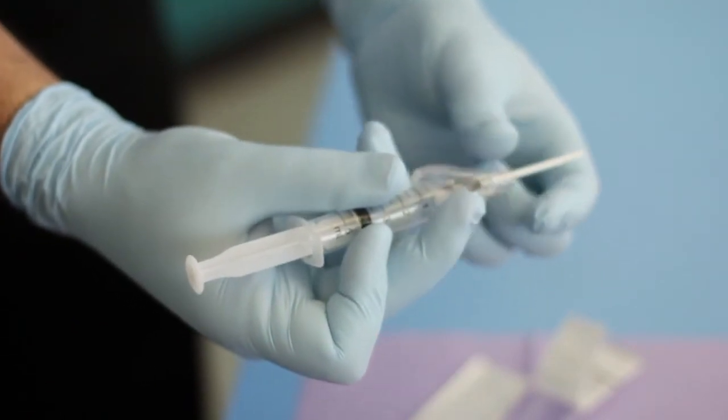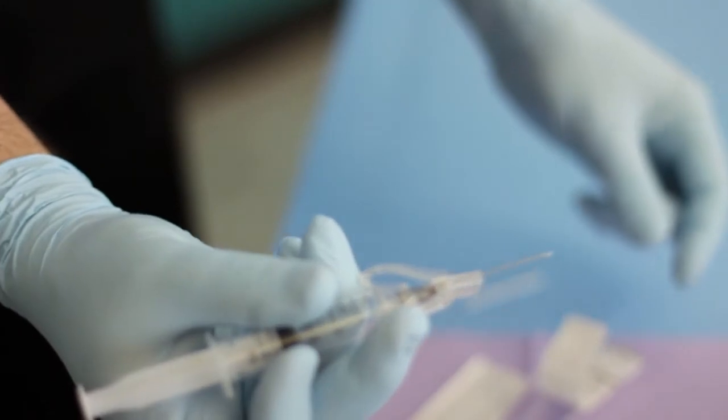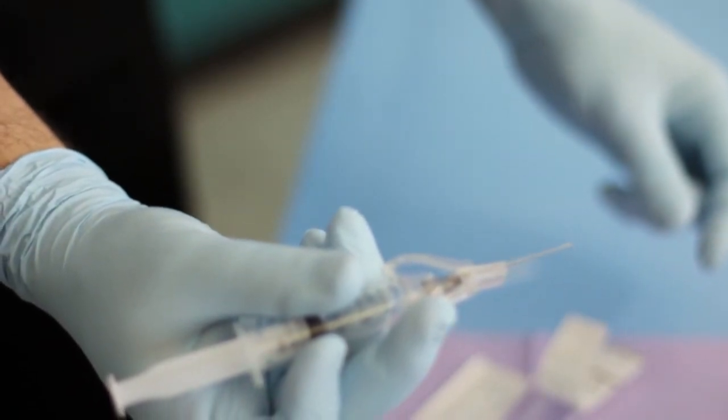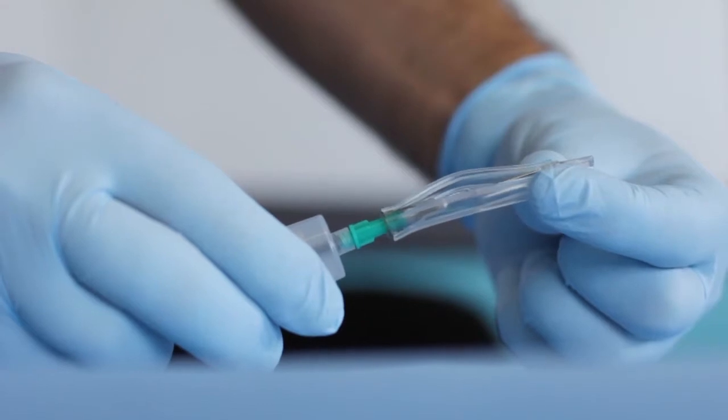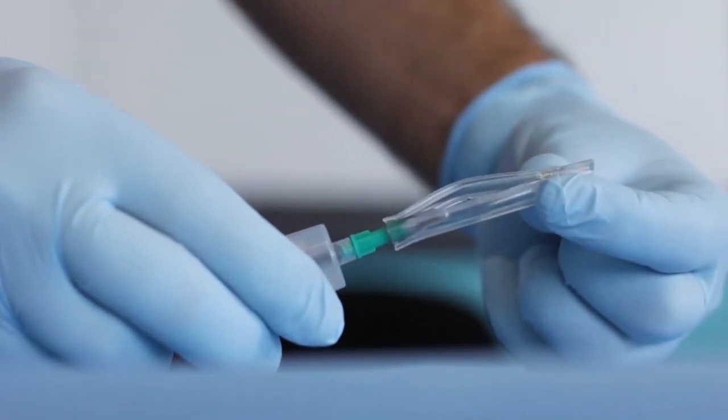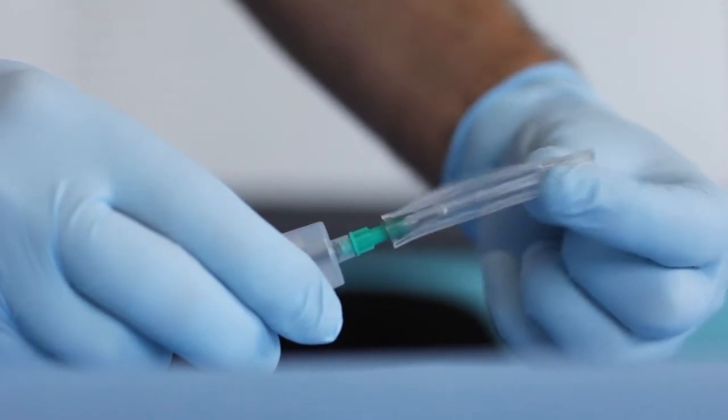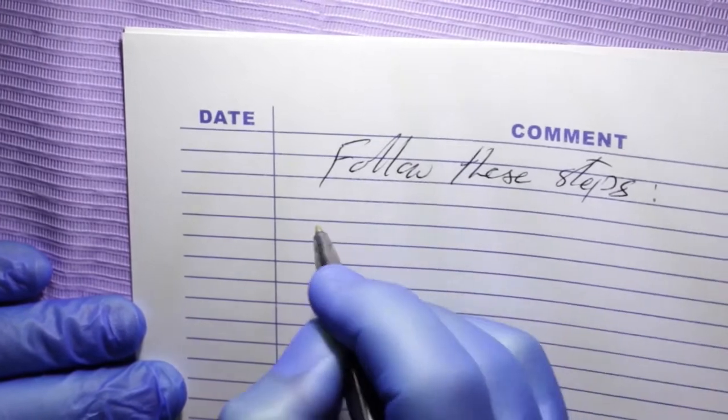The Apprentice-Doctor Venipuncture Kit contains AutoSafe Reflex safety needles, based on a comparative study of five types of safety needles. The Healthcare Product Evaluation Center conducted the research at the University of Virginia. AutoSafe Reflex safety needles are very effective and easy to use. However, one has to use them correctly. Follow these instructions exactly.